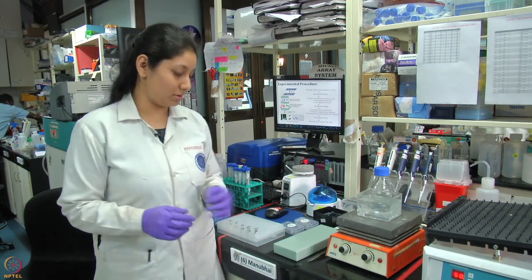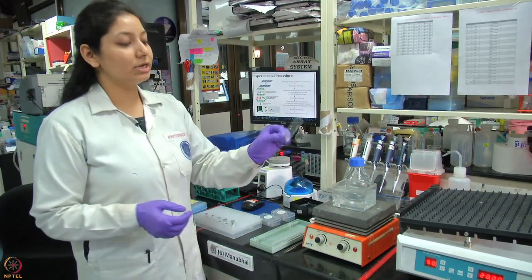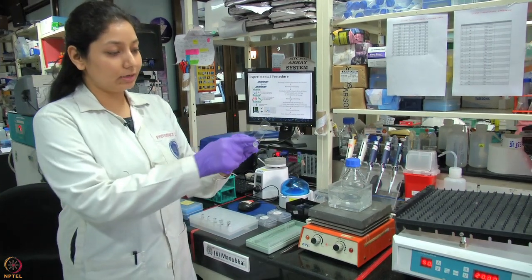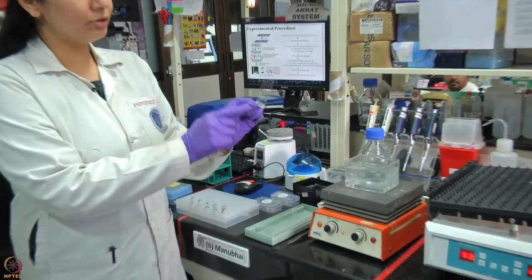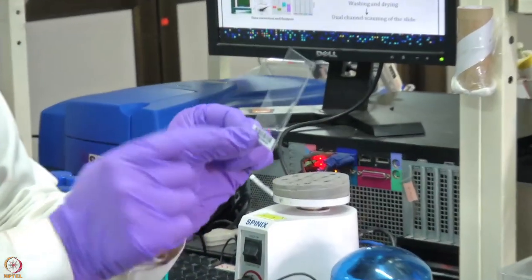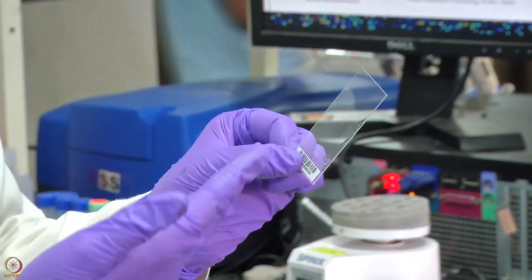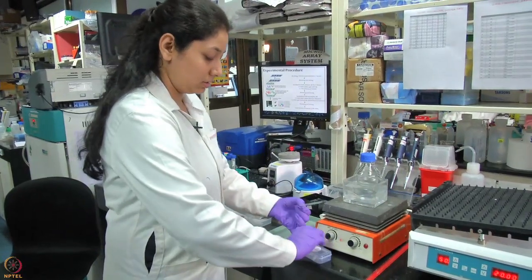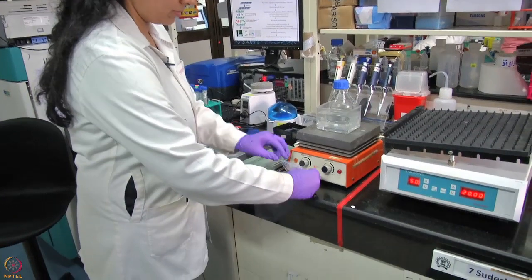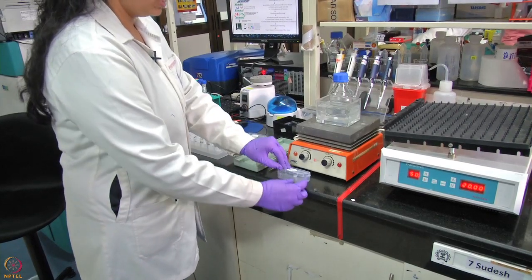Now let us move on to the hands-on experiment of how autoantibodies are detected using protein microarray. This is how the slide looks — a normal glass slide which contains 19,000 protein spots. The spots are printed in duplicate in this area. The barcode area should not be touched near the spots; you should only touch the slide at the barcode region to avoid fingerprints causing erroneous results.